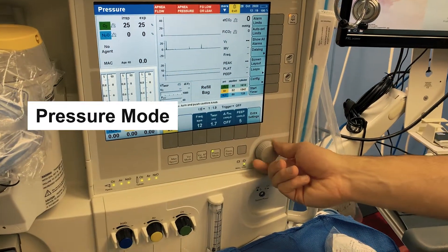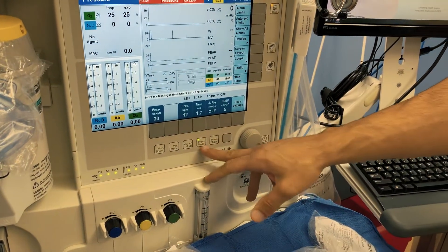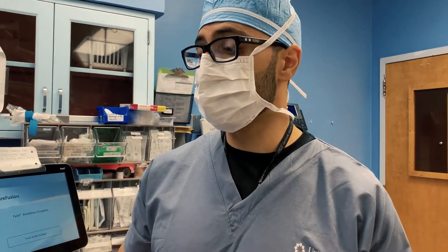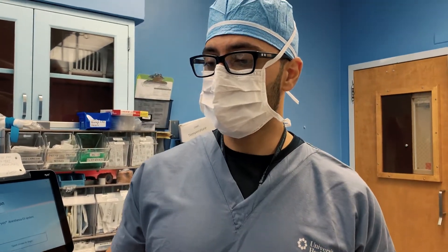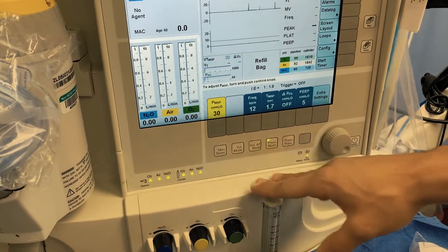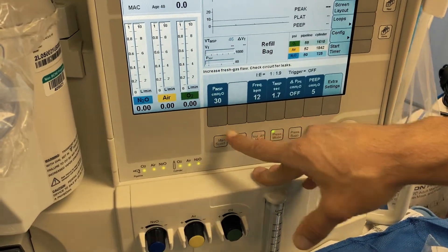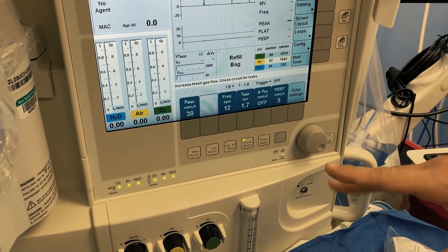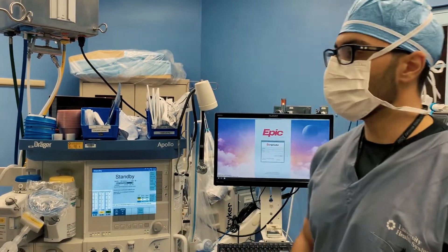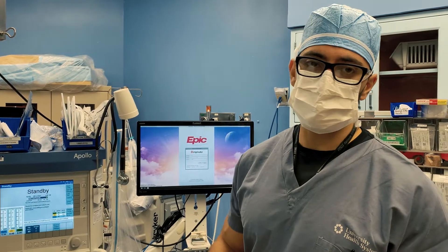In the operating room, if we have patients who are more obese, we might use pressure control or pressure mode instead of volume mode. This way, we control the amount of pressure delivered to the patient and decrease the risk of barotrauma. For instance, here I've set a maximum pressure of 30. With that pressure of 30, regardless of the patient's lung pathology, the ventilator will deliver whatever tidal volume it can at that pressure. That's the key difference between pressure mode and volume mode.